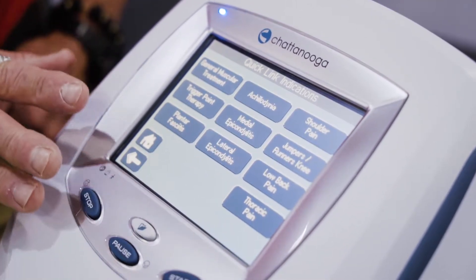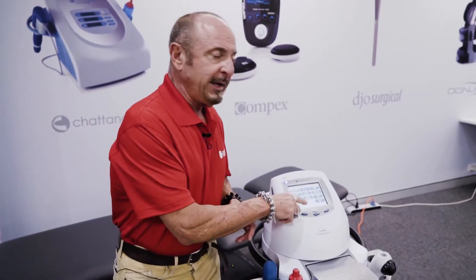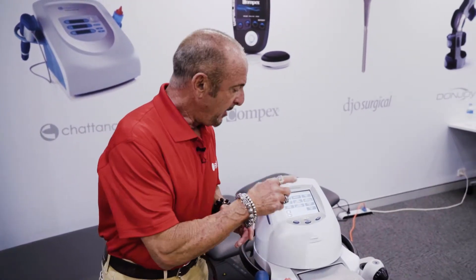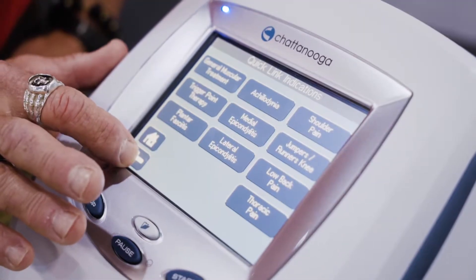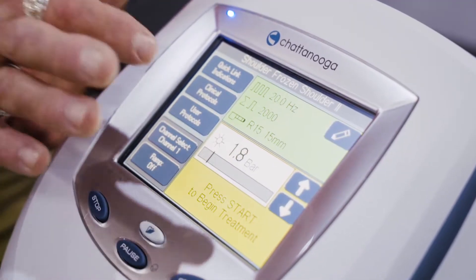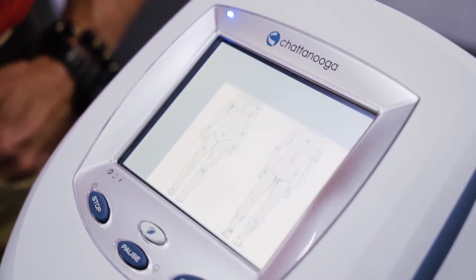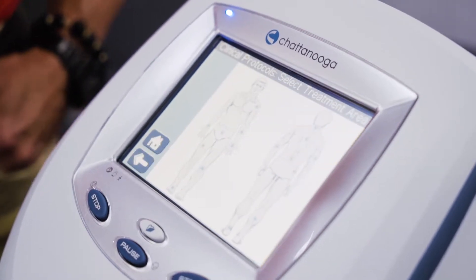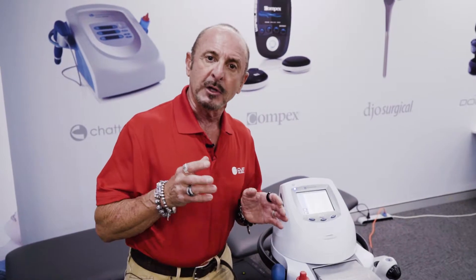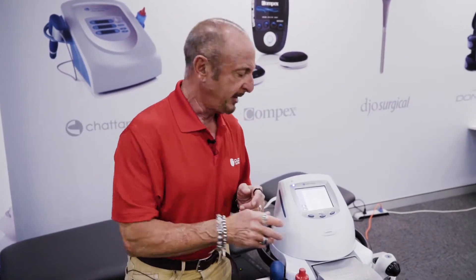However, on this condition, when we're looking at frozen shoulder, I don't quite have that in my quick links menu. But if I come back to my screen, I do have a clinical protocol menu. By clicking protocols, I get an anatomical diagram where I can pick or get closer to the desired diagnosis.